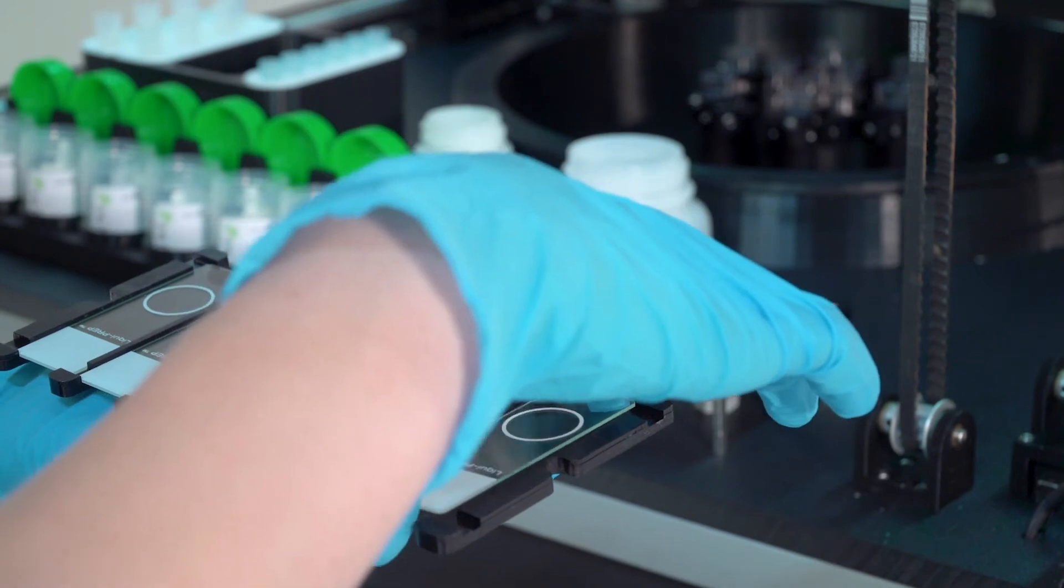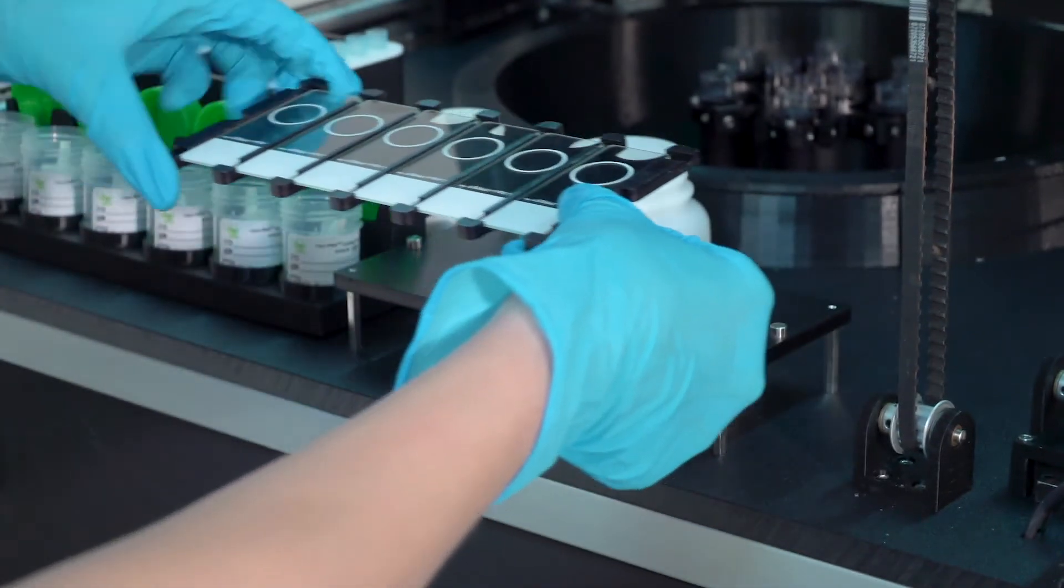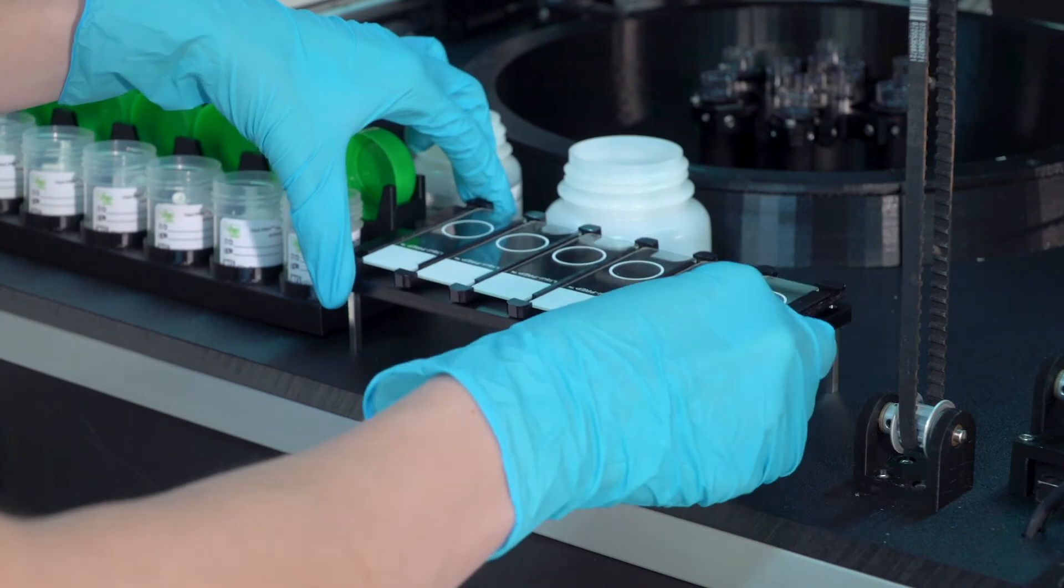Label the microscope slides and place the slides onto the slide tray. Then place the slide tray onto the heated slide tray holder.